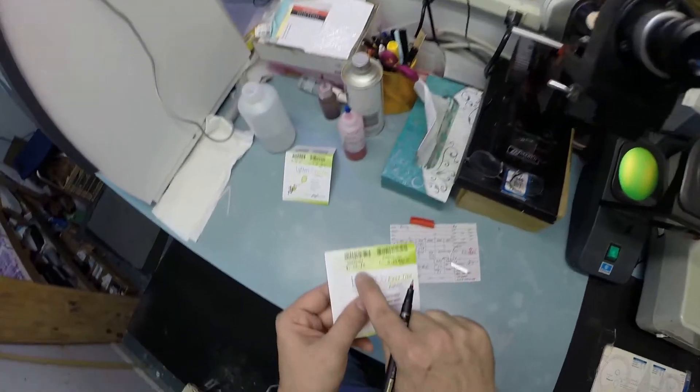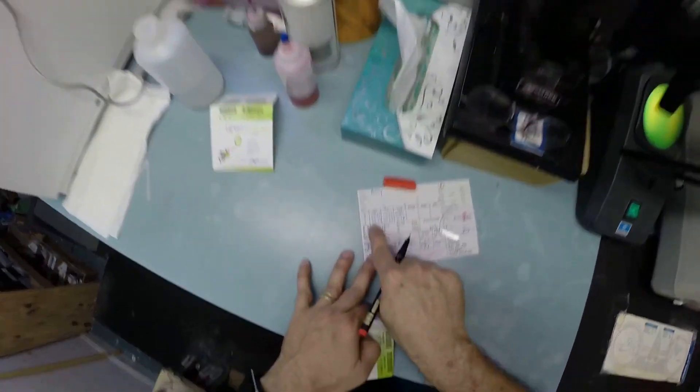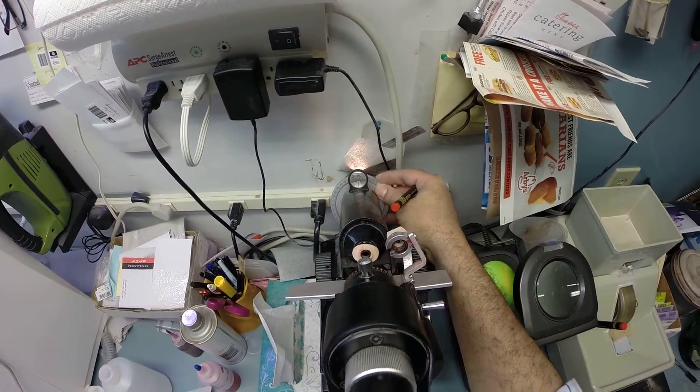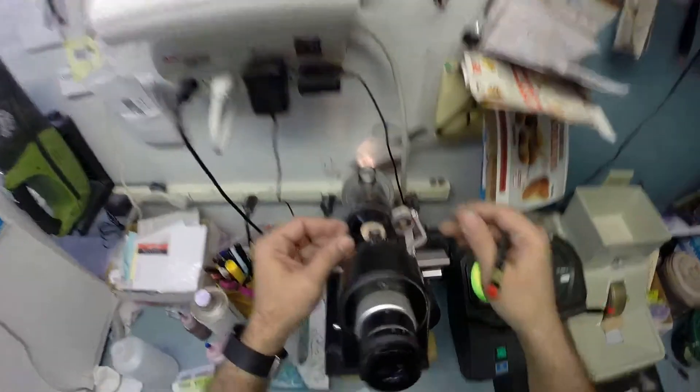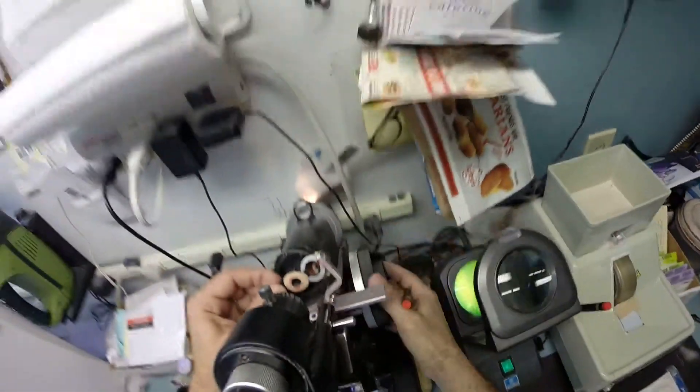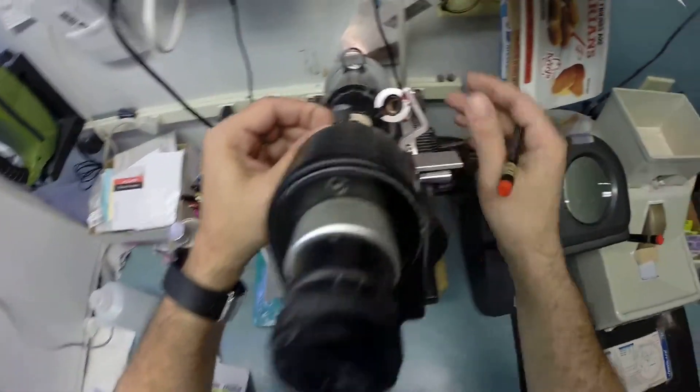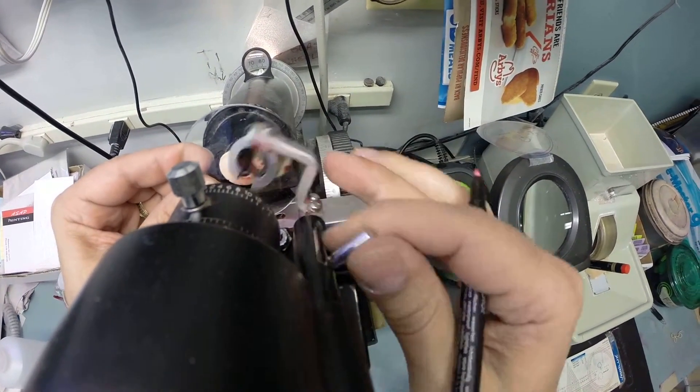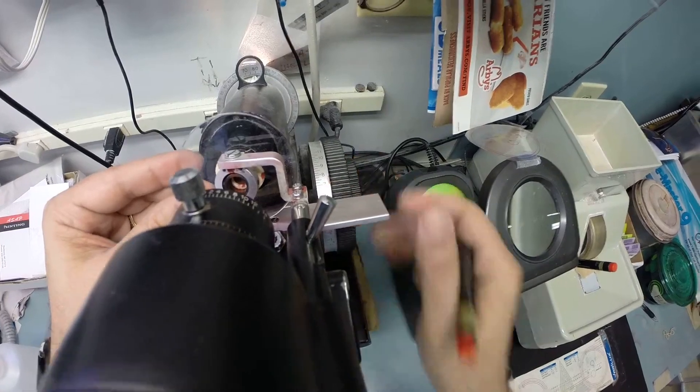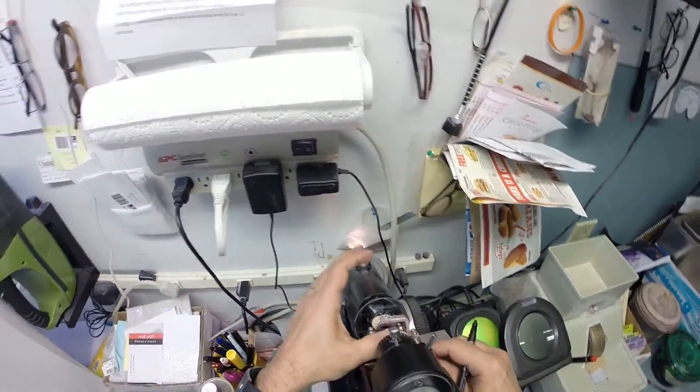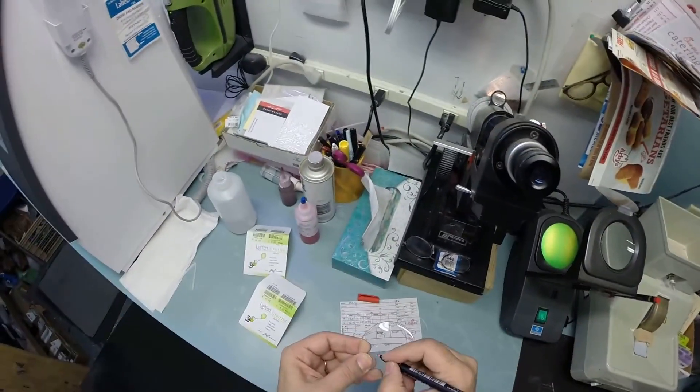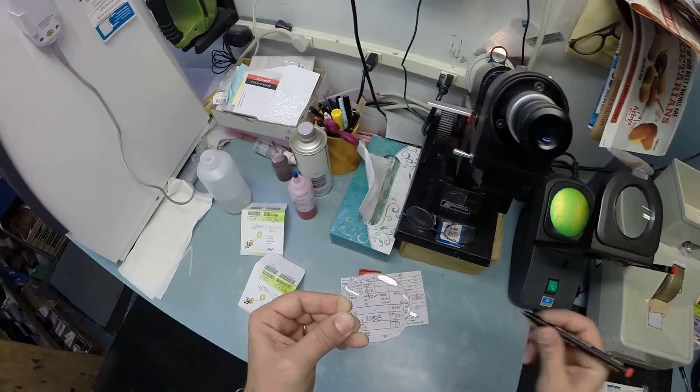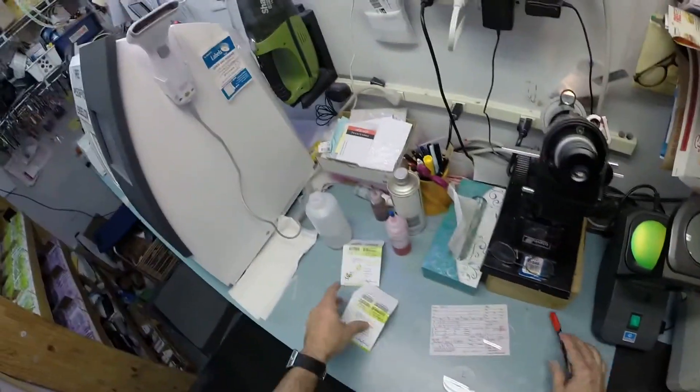Let's do the same thing now for the left. Plus 275, minus a quarter at 78. So I only have to turn the axis wheel two degrees from 80 to 78. Take your lens out of the protective sleeve. Put the power drum on 275. Now the lens comes in clear. Find the spherical component, the optical center. Check your astigmatism correction. That looks good. Put those three dots on your lenses. One, two, three. And I'm going to mark this one L for not right. Just like me, because I ain't right either.